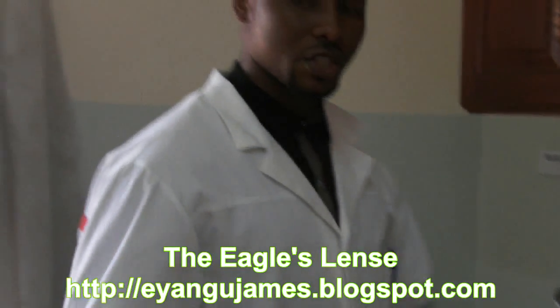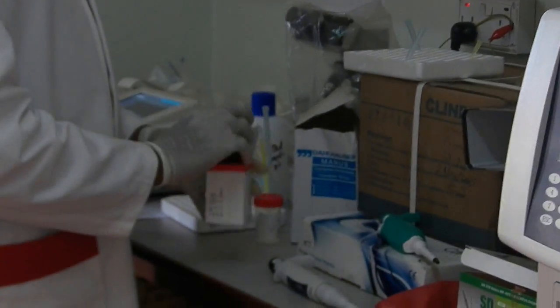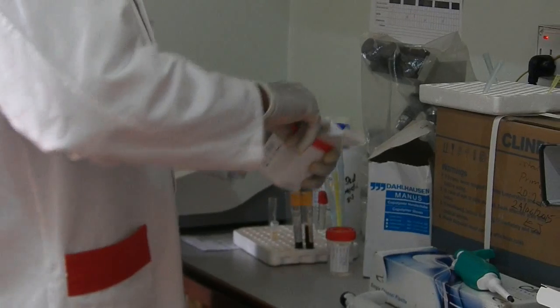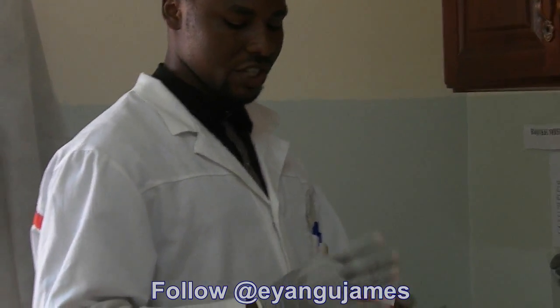Every time you finish using a reagent, cap it and put it back into its box. And because we try to maintain a cold chain for some reagents — like this one, stored between 2 to 8 degrees — get it back into the fridge.